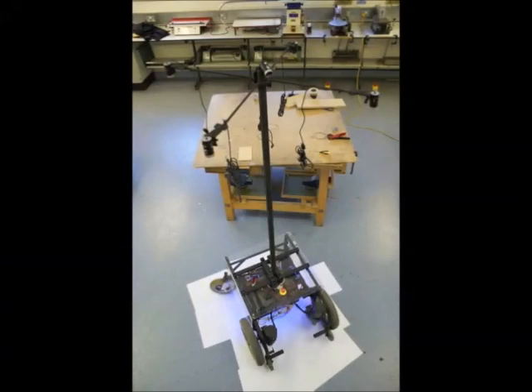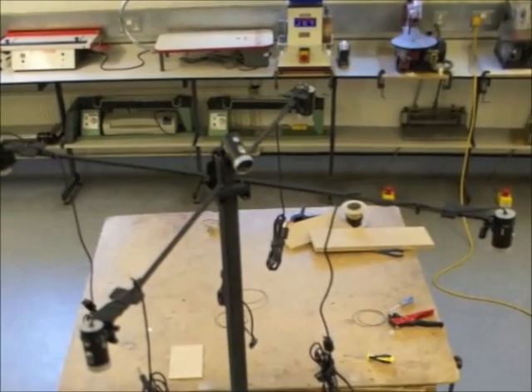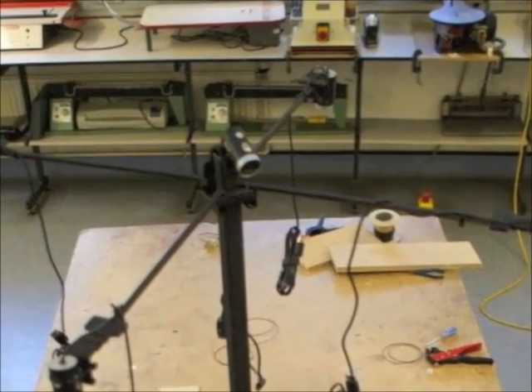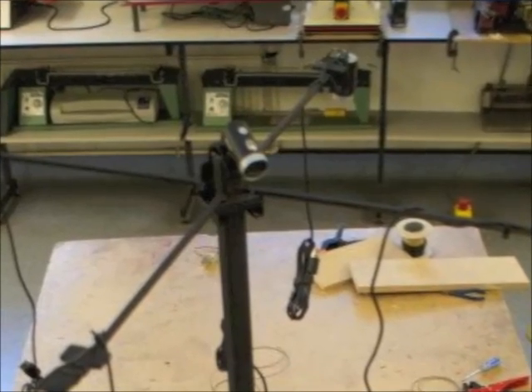Four pairs of stereoscopic cameras scan the entire area around the robot for obstacles. If the user is about to walk into one, the robot will pull on the lead, guiding the user around the obstacle. Another camera on top checks for traffic to determine if it is safe to cross the road.